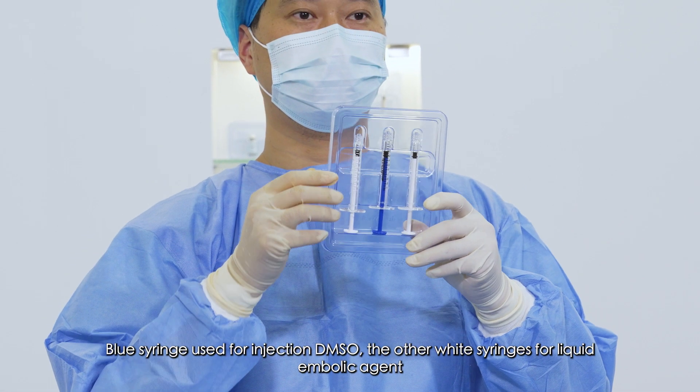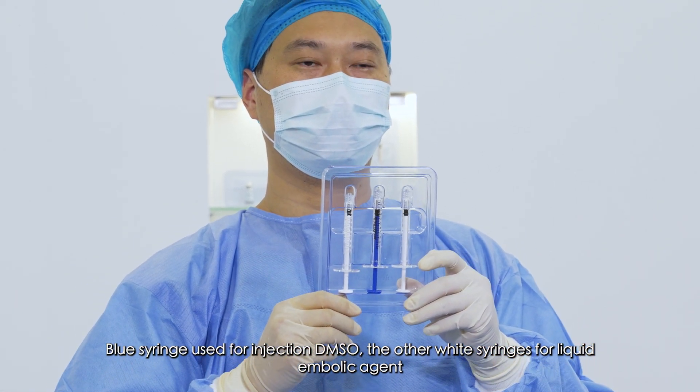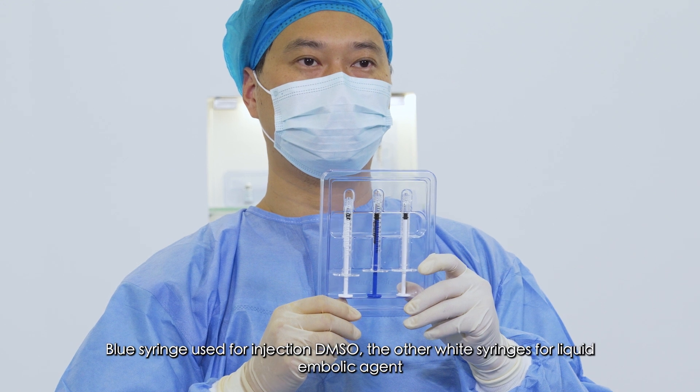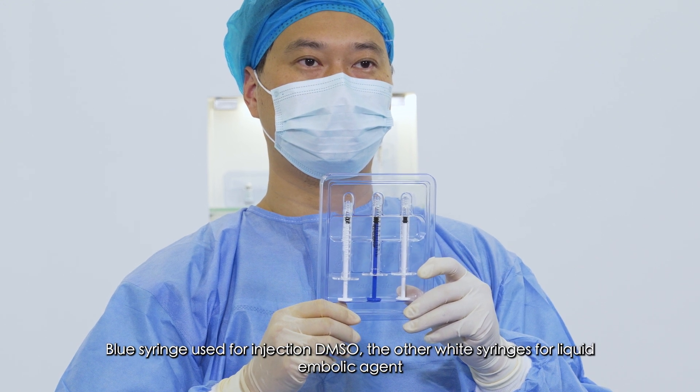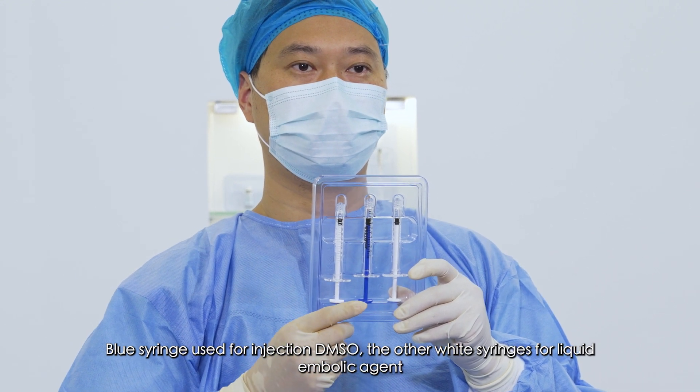The blue syringe is used for injection of DMSO, and the other white syringes are used for the liquid embolic agent.